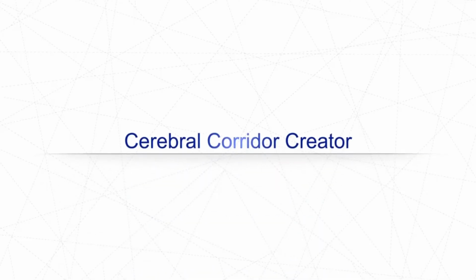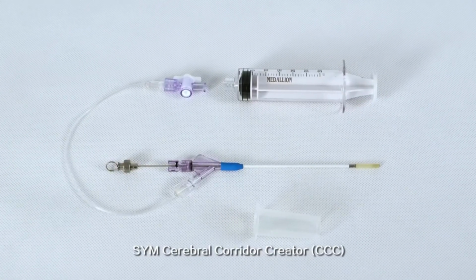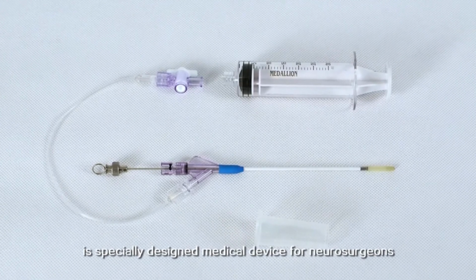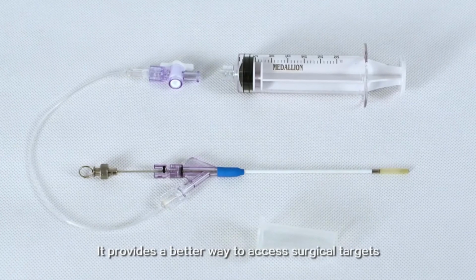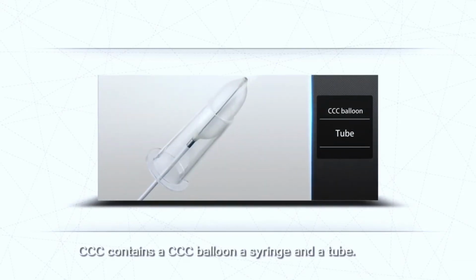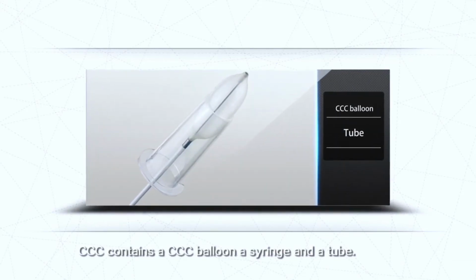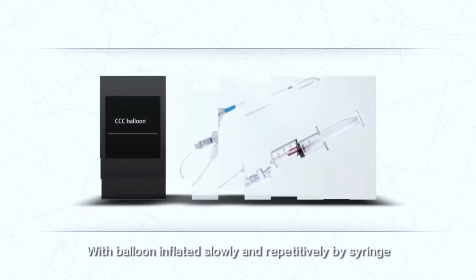Cerebral Corridor Creator. SYM Cerebral Corridor Creator (CCC) is a specially designed medical device for neurosurgeons. It provides a better way to access surgical targets in the brain without unduly damaging surrounding tissues. CCC contains a CCC balloon, a syringe, and a tube, with the balloon inflated slowly and repetitively by the syringe.